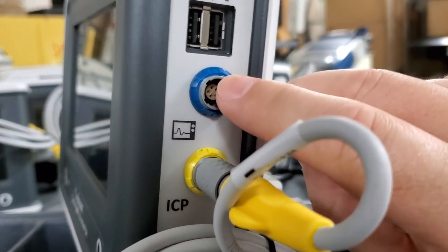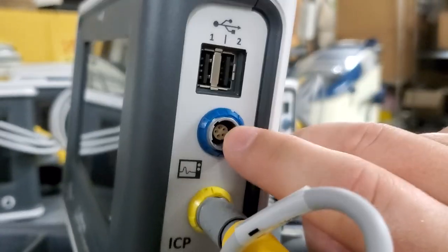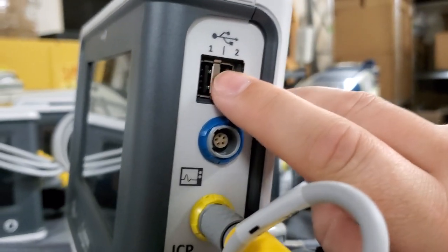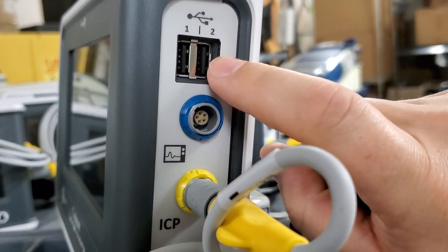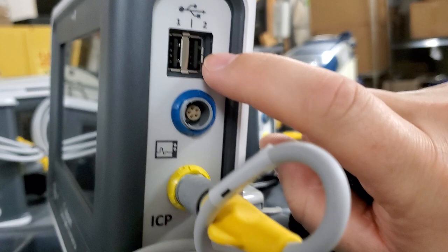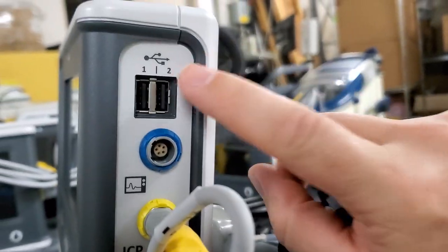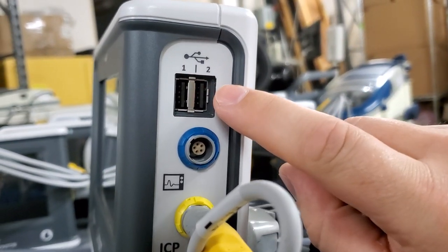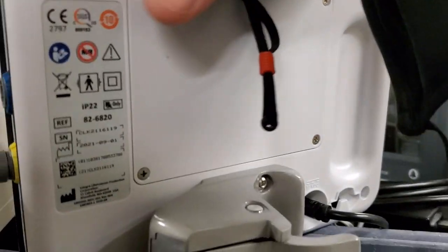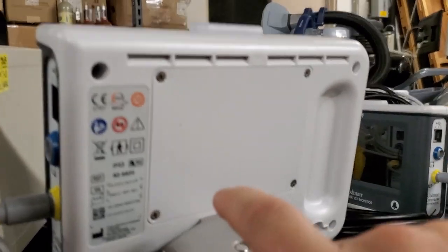I don't know if that's data out, data in, what's going on with that. USBs, I'm not really sure what you do with those. Unless that's where you pull your serial data out and that can go to the digital medical record. I'm not very sure. I'm kind of assuming that's the way it is.